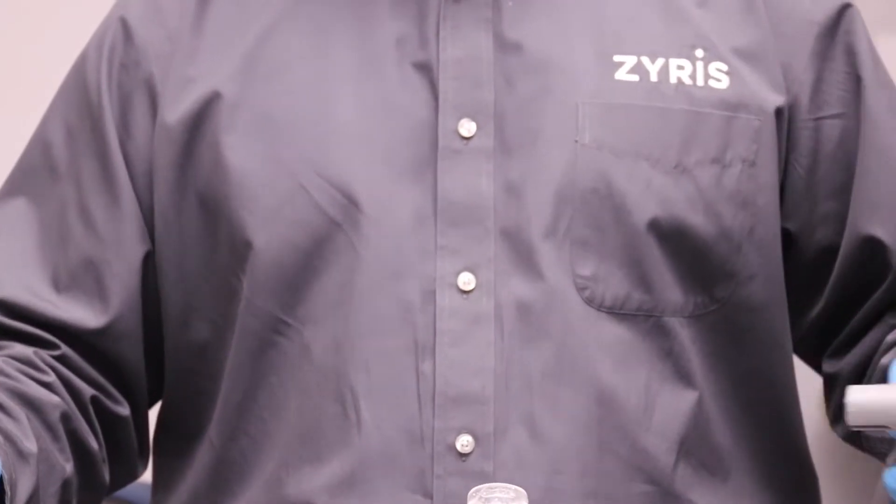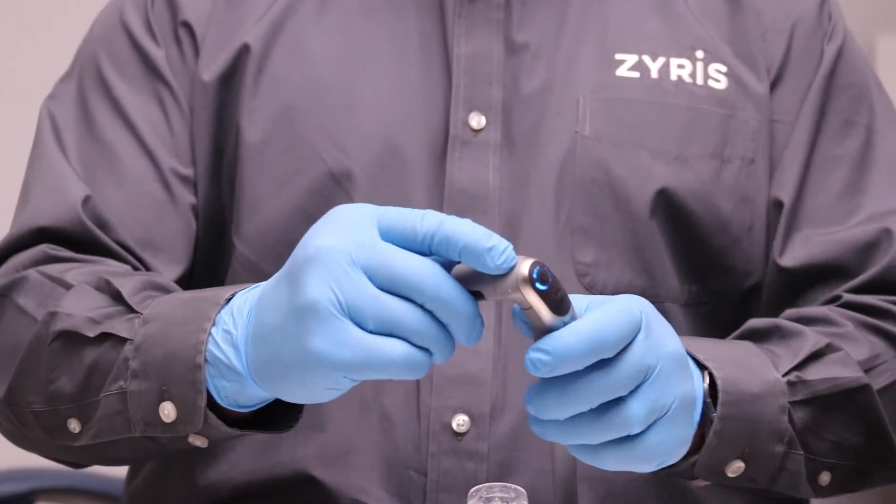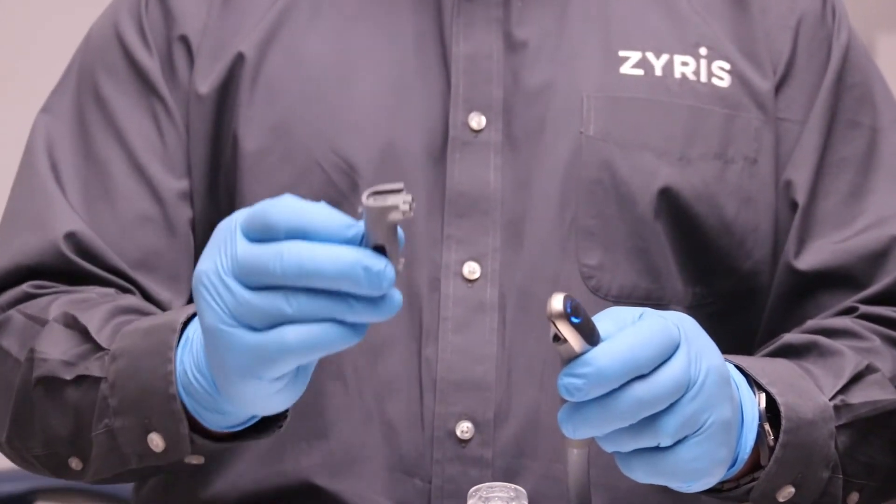To place the mouthpiece onto the Isolite Pro, make sure that you're using a clean vacuum light pipe. It's as simple as sliding it on and clicking it.